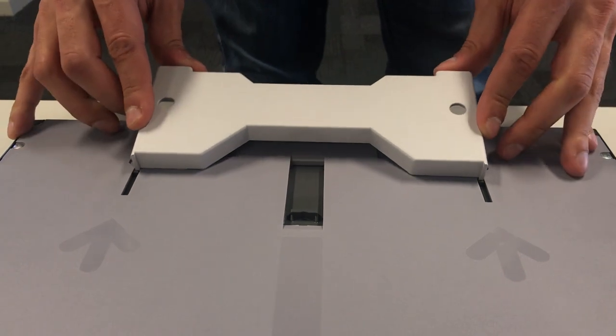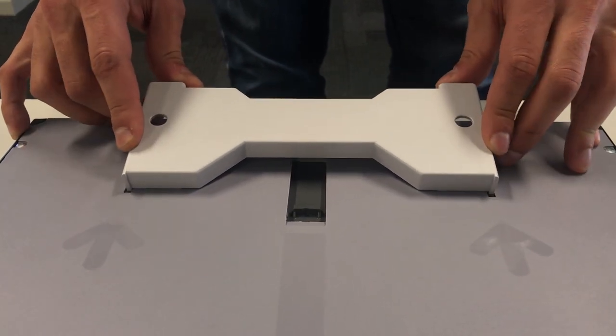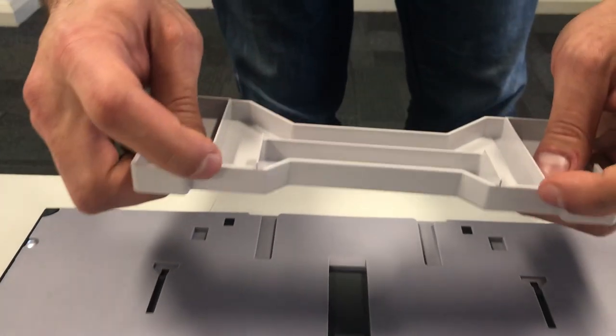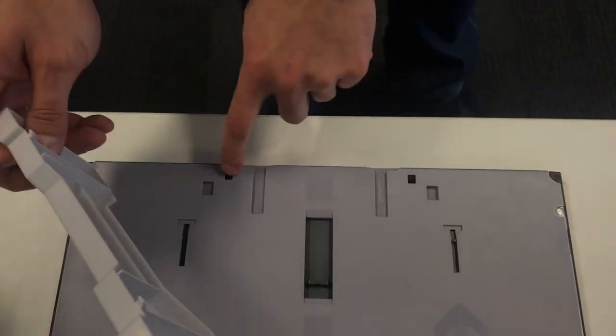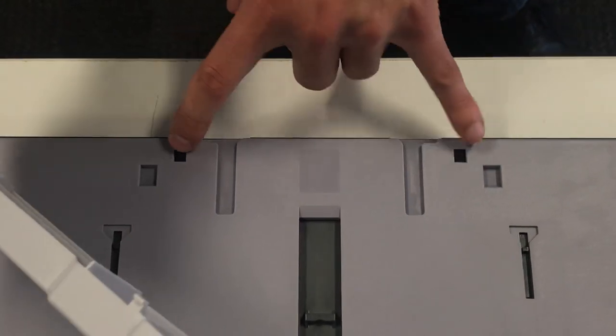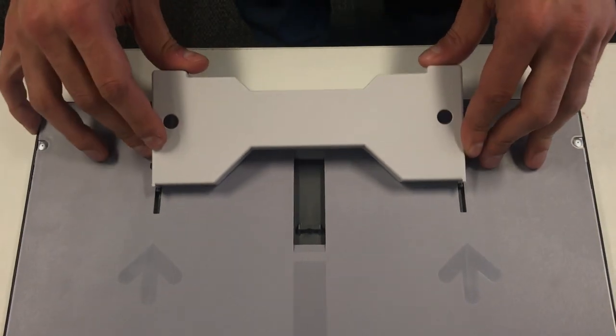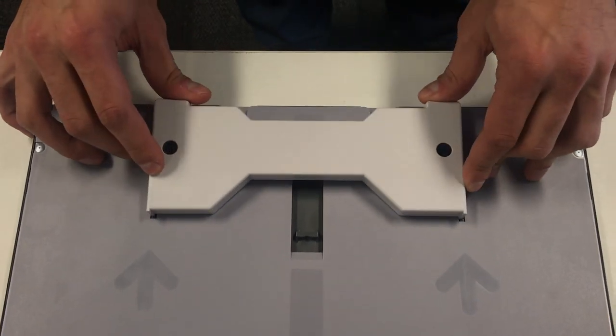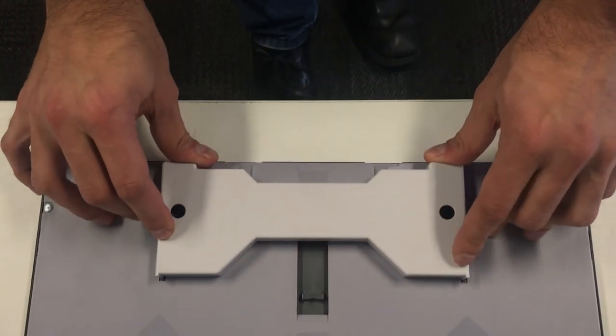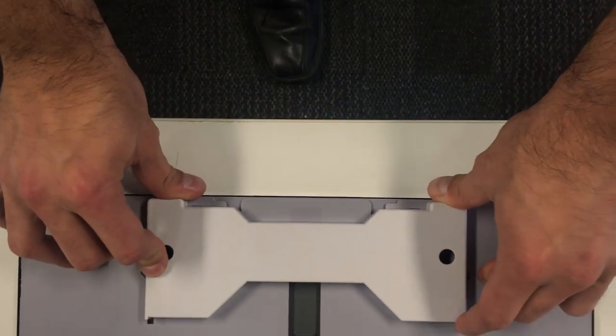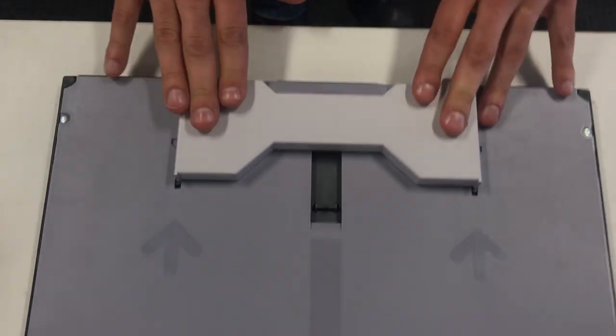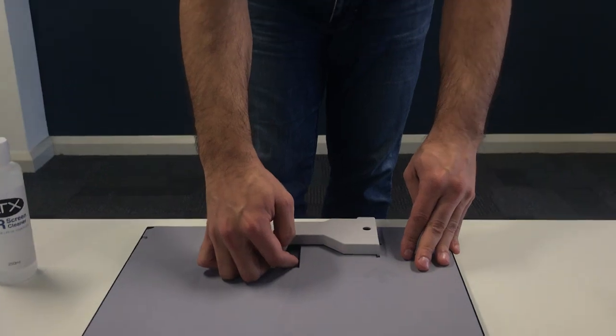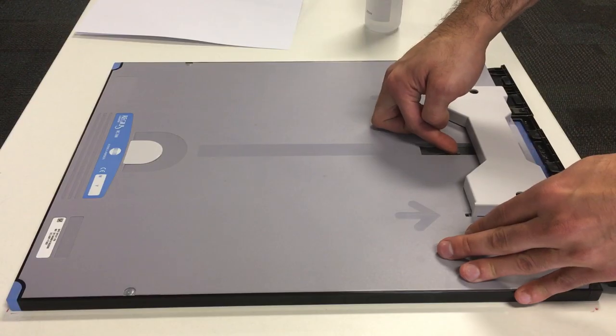It pretty much slides. And these little guys here, they just sit on these two little notches. So this is to allow access to the cassettes. So once that's in there, we can just pop the cassette out just like that.